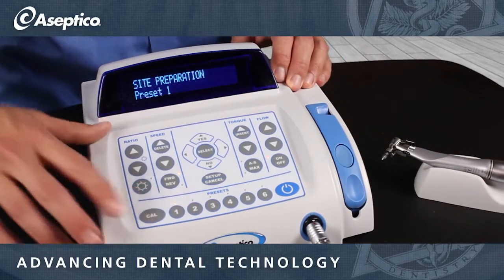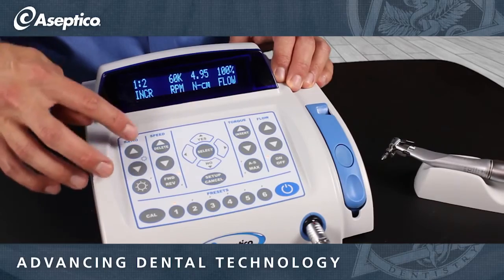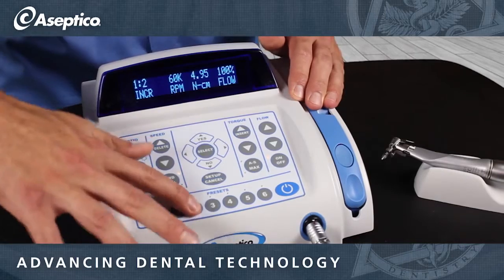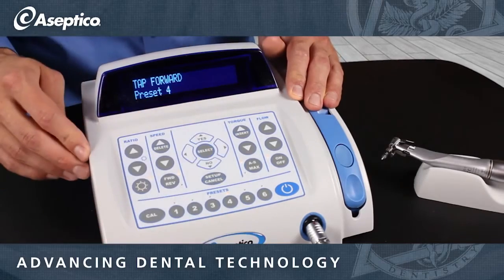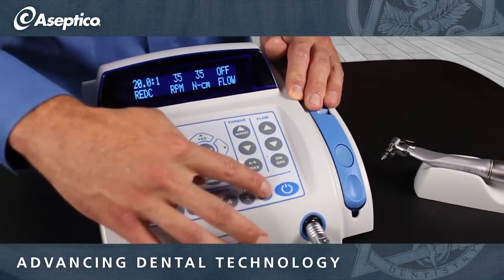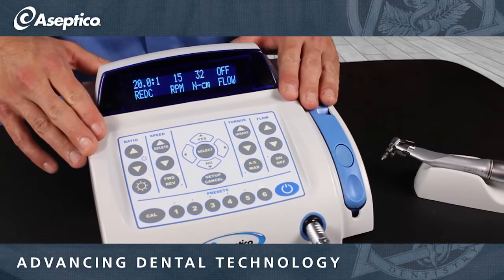Let's see what we already have. Every single preset has a title that can be renamed. Each of these presets is set up in order of your implant procedure: first, site preparation; then your pilot drill; we also have the ability to have an additional finishing drill, a tap, a reverse of that tap, and then final placement. If you're using self-tapping implants or have some other process with multiple osteotomy drills, you can definitely customize one of these presets.